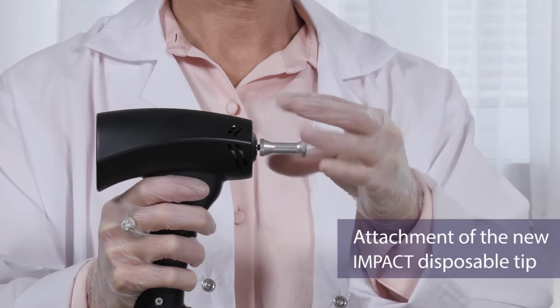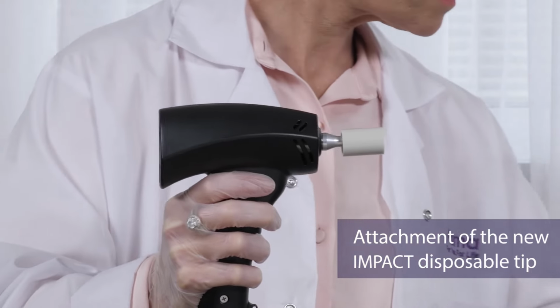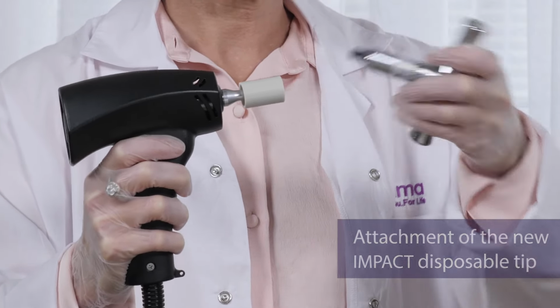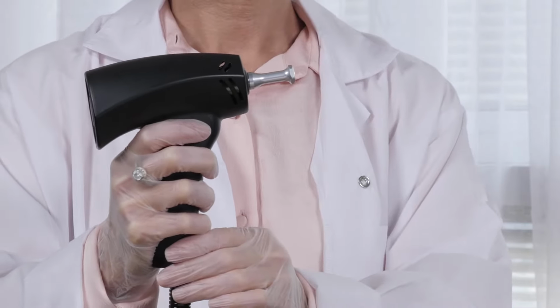Screw the new tip onto the applicator. Connect the plastic socket to the new tip. Connect the torque wrench to the plastic socket. Turn the torque wrench clockwise until you hear it click. This will indicate that the tip is in place. Once the tip is in place, you may start the treatment.